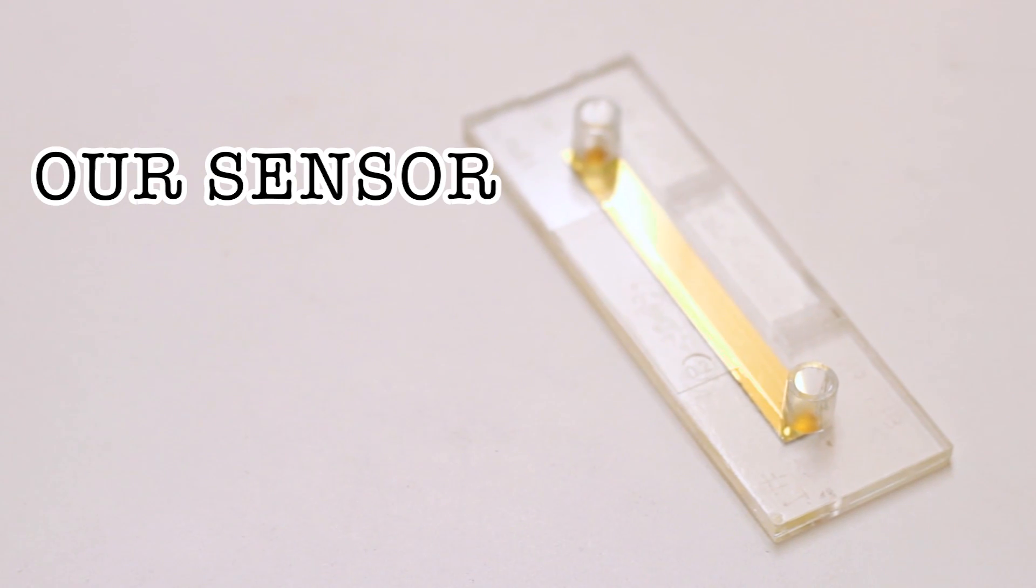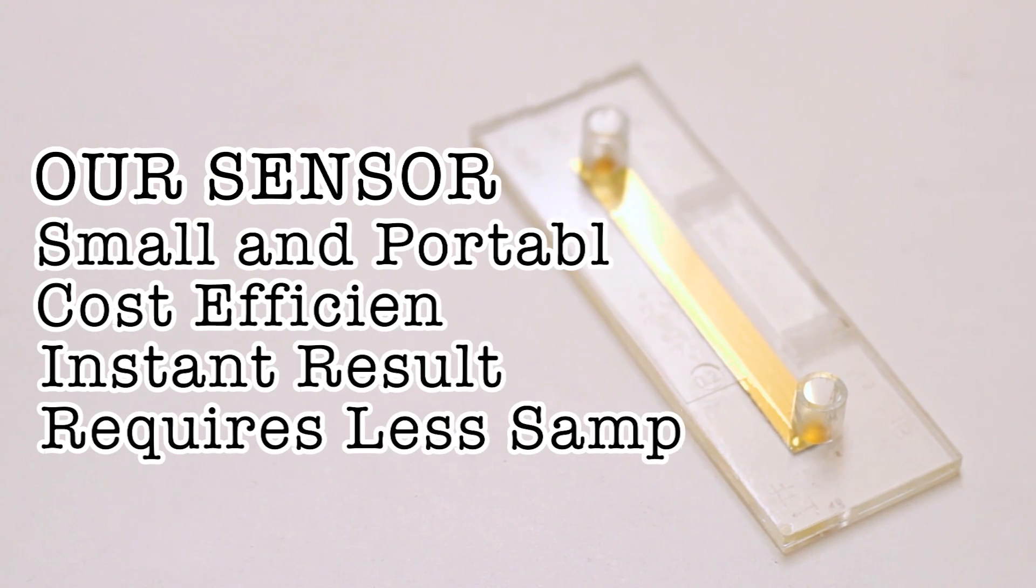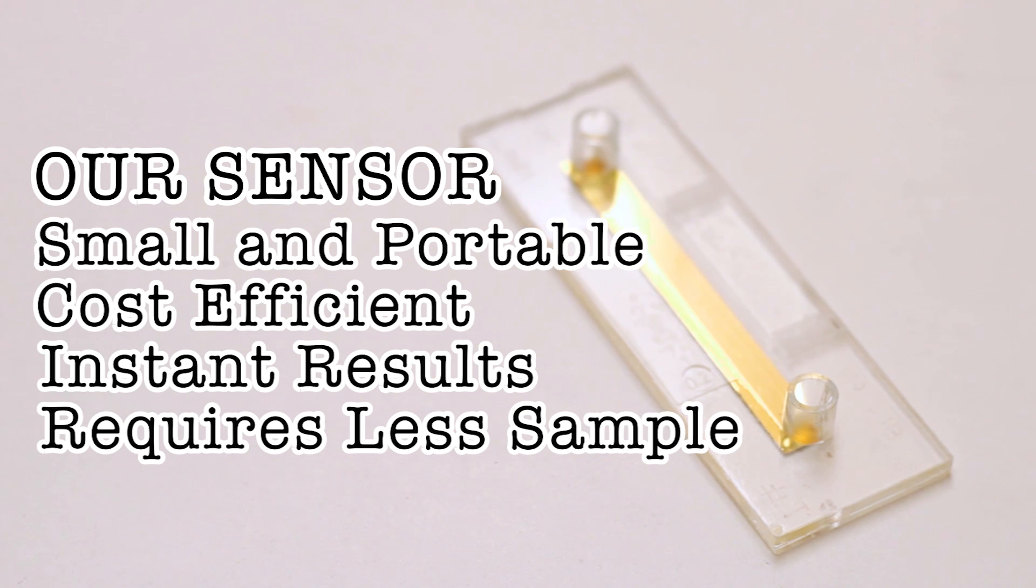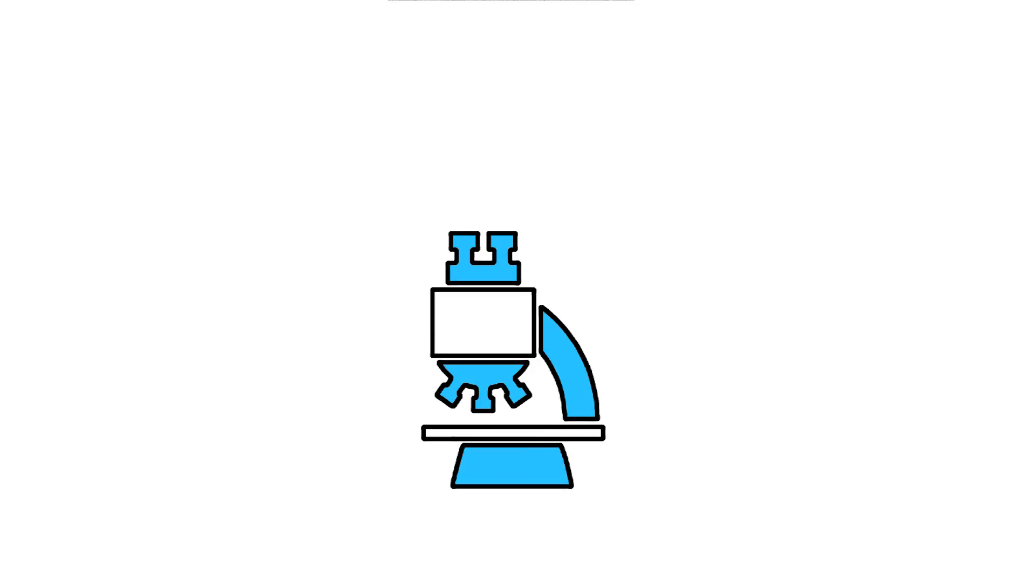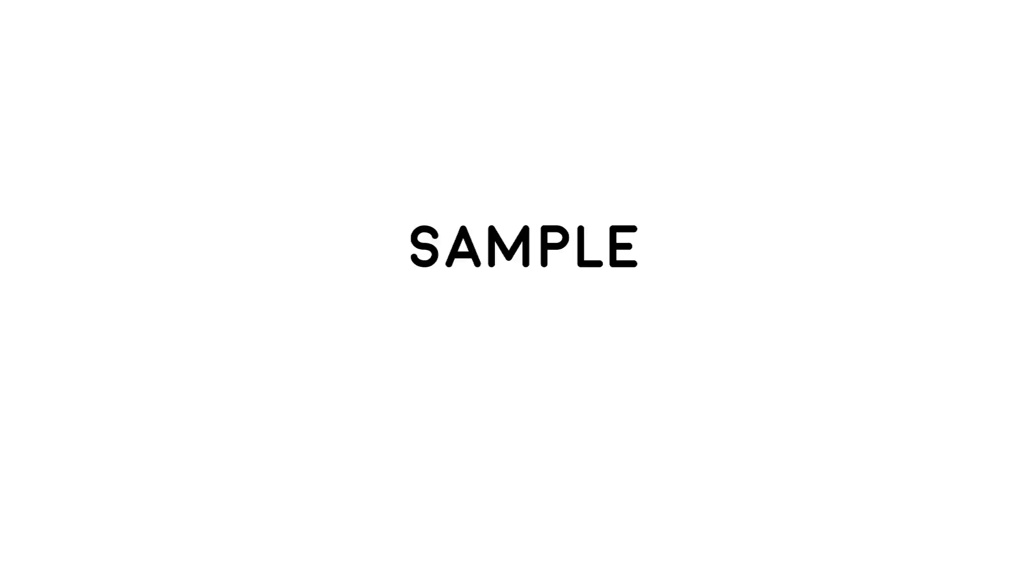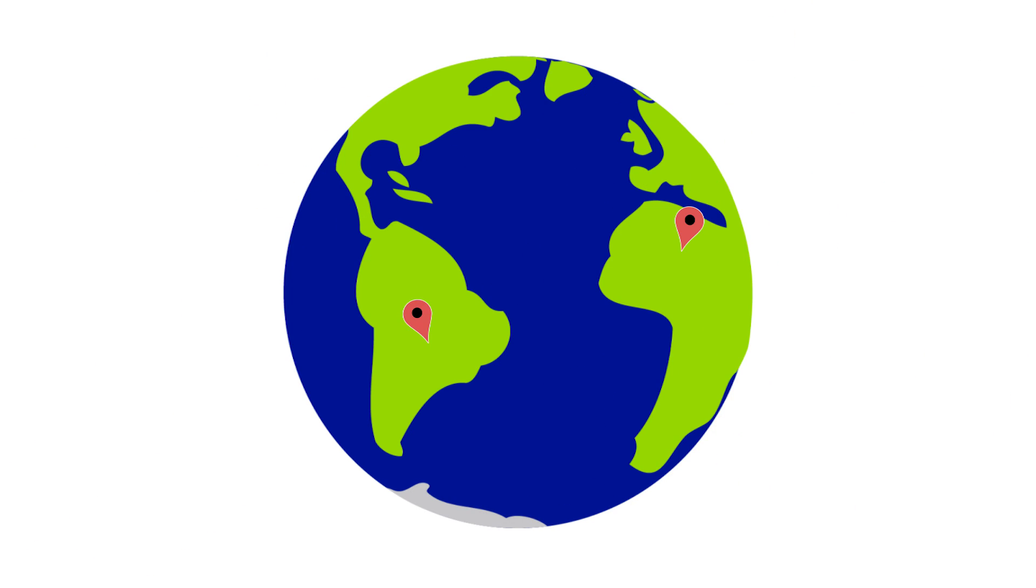Our research is on making portable biosensors for disease diagnostics. This type of testing is currently done by large expensive instruments. Samples are collected, shipped to a laboratory, and this process takes some time and money as the samples usually require refrigeration.